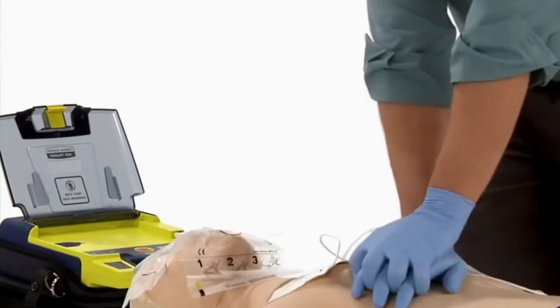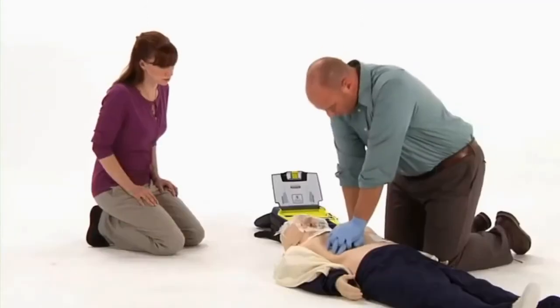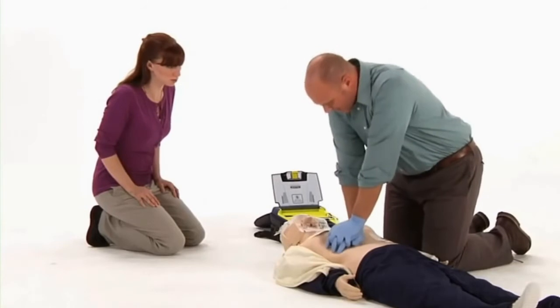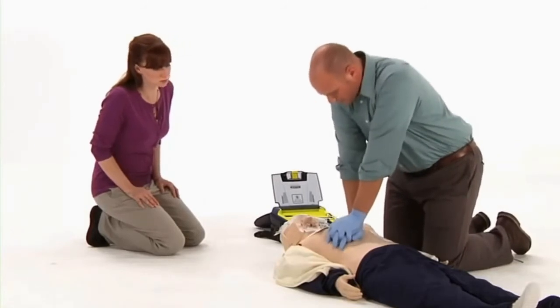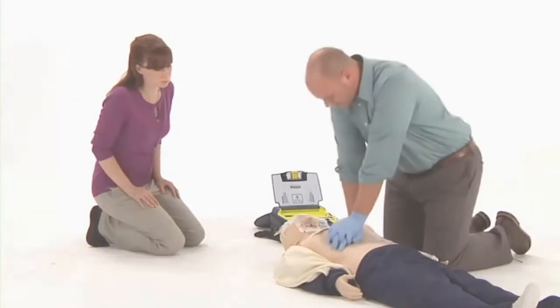Emergency personnel are trained in the use of AEDs. However, AEDs are designed to be used by anyone in the general public, with instructions provided by the machine.